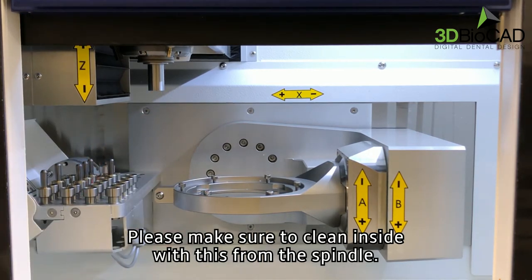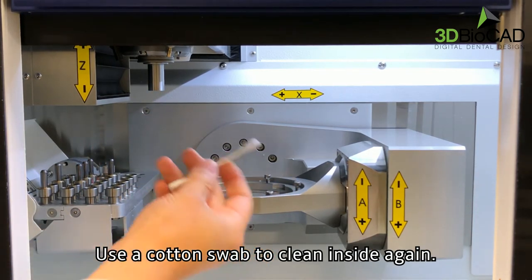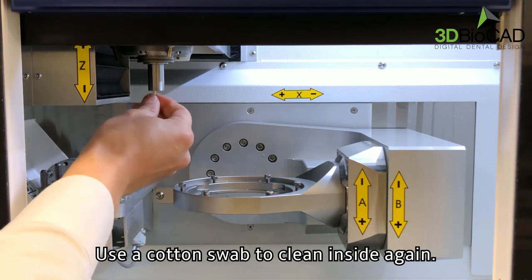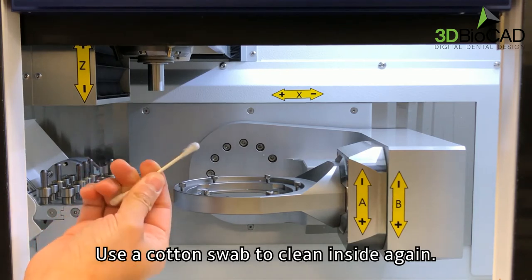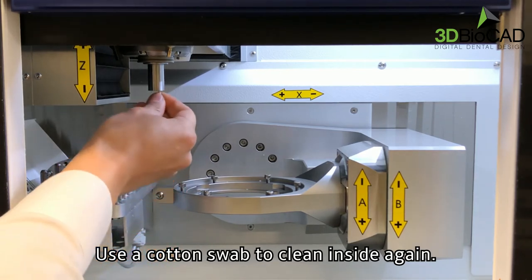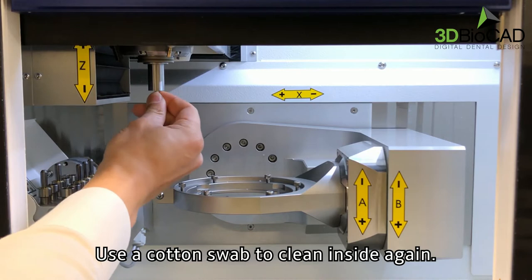Please make sure to clean inside the spindle. Use a cotton swab to clean inside again.